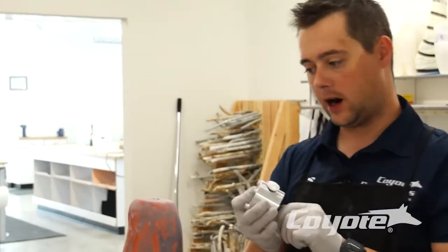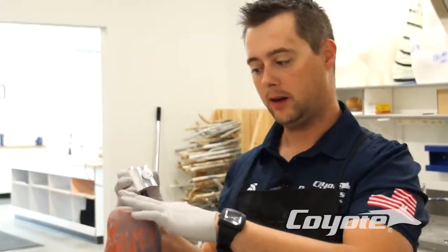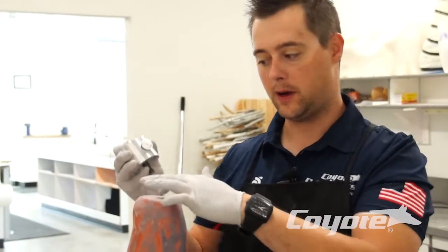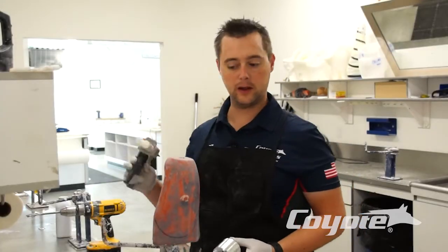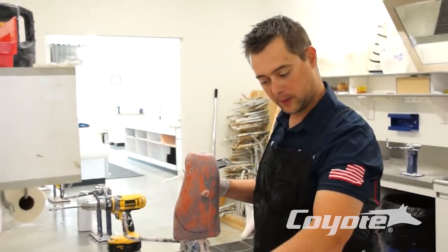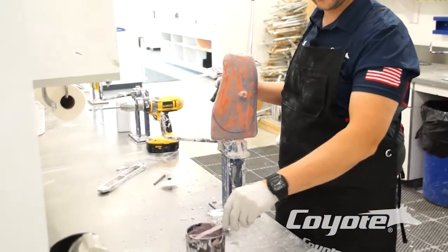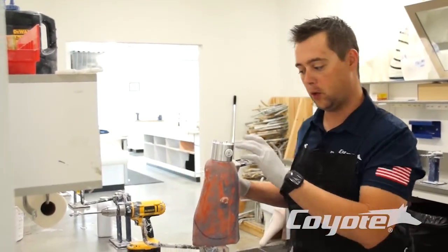So now we have our bolt-on version. What I've done here is flatten my distal end and drill the hole where I want my bolt to recess in. You can certainly use plaster and fill in your hole — we have some plaster here — throw in some plaster on it, and then mount your tooling dummy onto your mold.